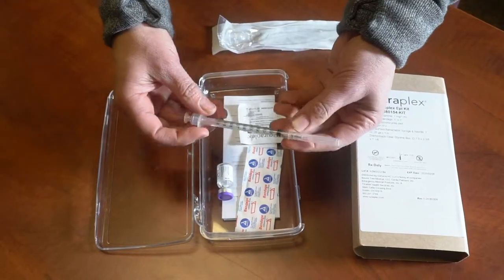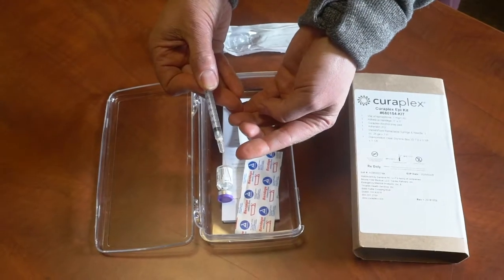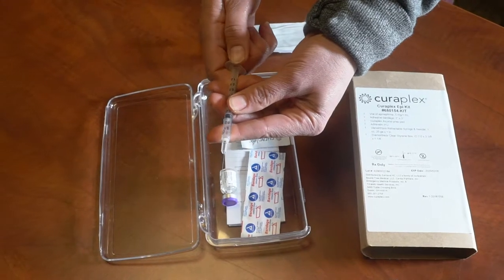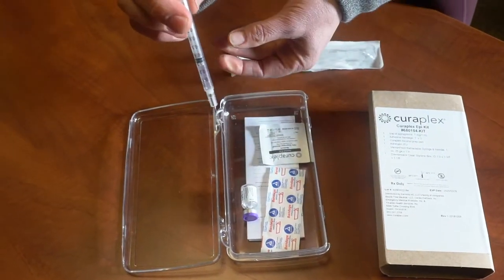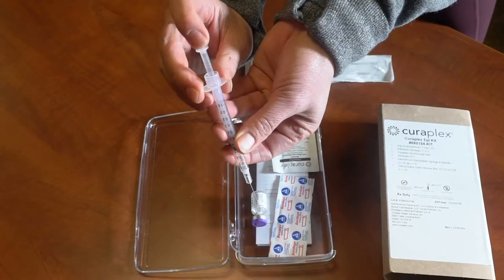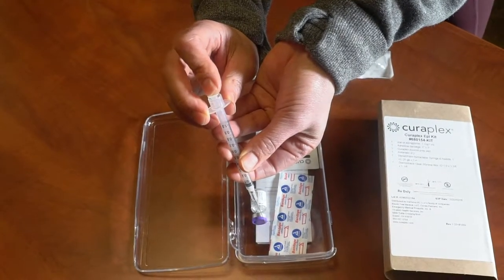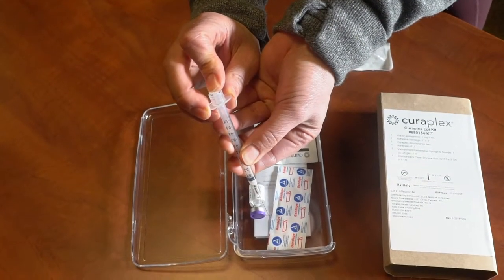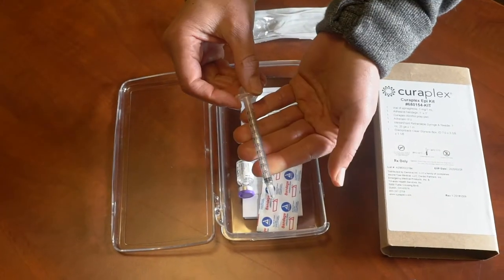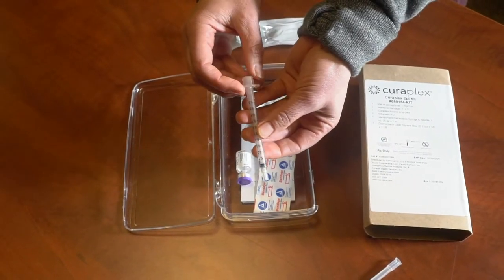Once you draw up your medication, you'll notice the needle is already attached. Draw up your desired medication to the desired dose, and once you administer the medication, there's a new safety device. Once you push the plunger to give the medication and you're done, put a little more pressure at the end and the needle retracts back up into the syringe. This prevents needle sticks out in the field when caring for patients — that's a really cool new change.